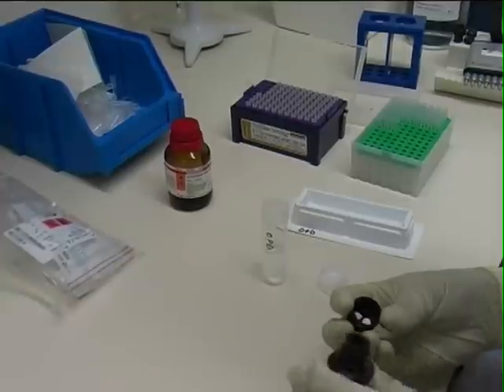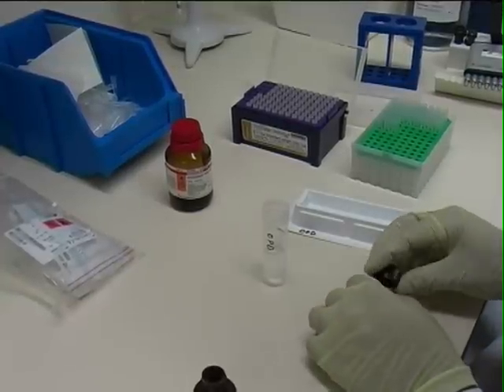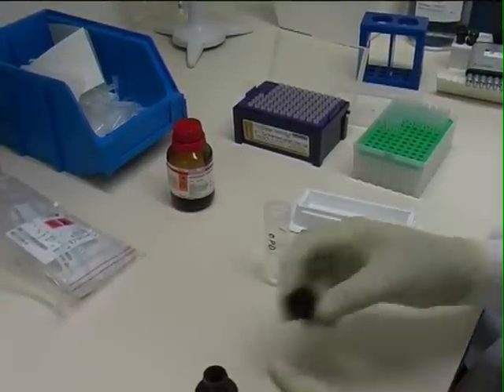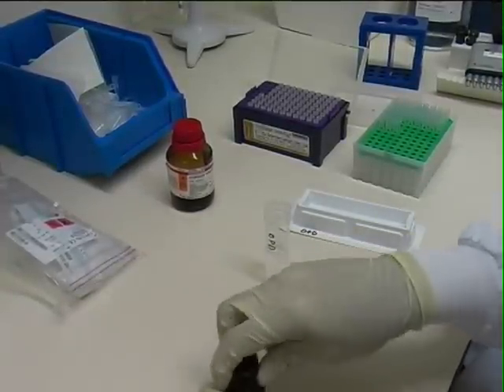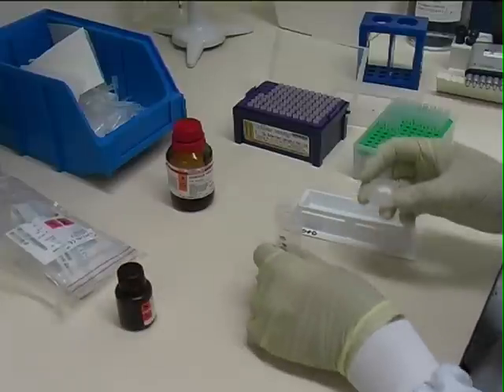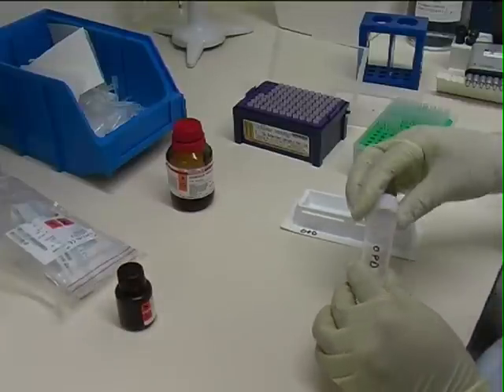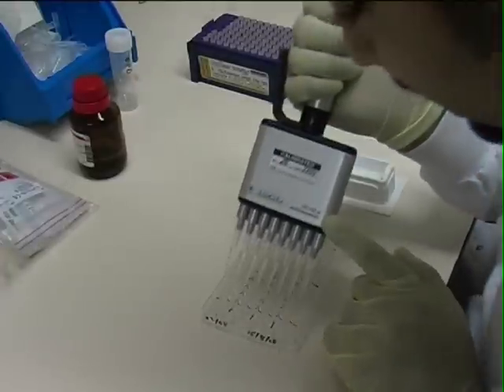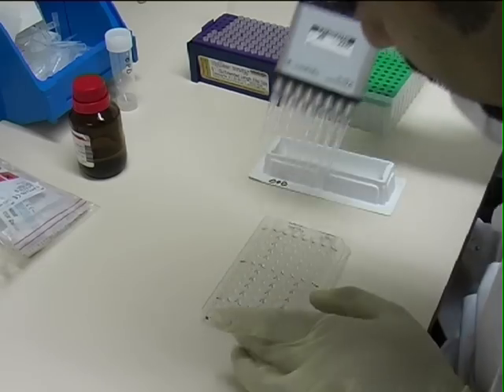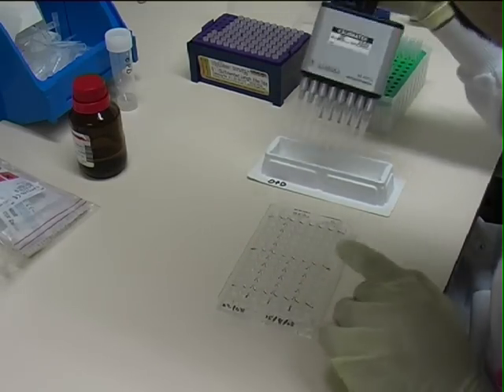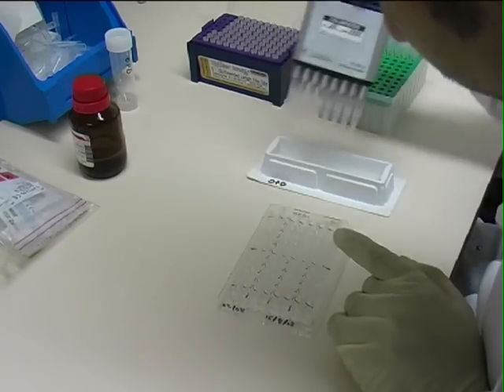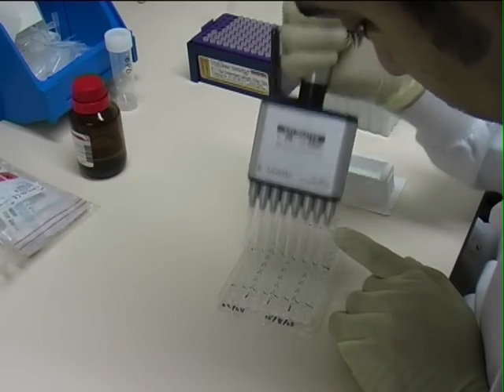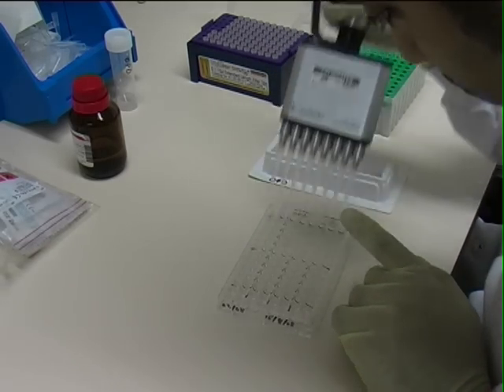After the one hour incubation, the plate is washed six times as before and the buffer is discarded. Finally, OPD tablets are dissolved in distilled water and hydrogen peroxide is added. The substrate solution is then added to all wells and the plate is incubated for 10 minutes while the colour develops. It is important to carry out this stage in the dark as it keeps the background values low.